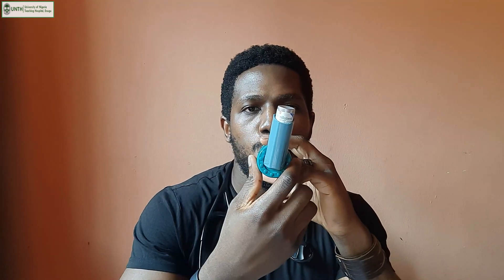Prepare yourself to use the medication: sit or stand, whichever you prefer. At this point you don't have to do the deep breath in and out because you're going to breathe in gradually with the medication. Form a tight seal with your mouth and the mouthpiece, ensure your tongue is not obstructing the mouthpiece, then squeeze your pressurized metered dose inhaler and take gradual breaths — three to five normal breaths through your mouth as carefully as you can. After three to five breaths the medication is assumed completely inhaled. Wait 30 to 60 seconds and repeat for the second puff.